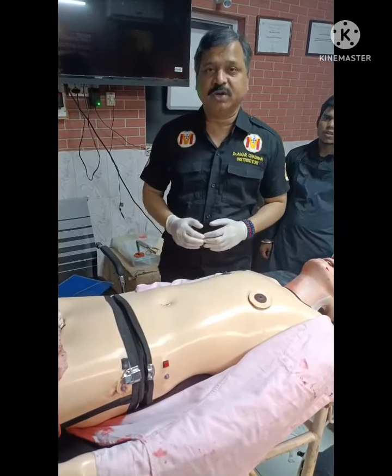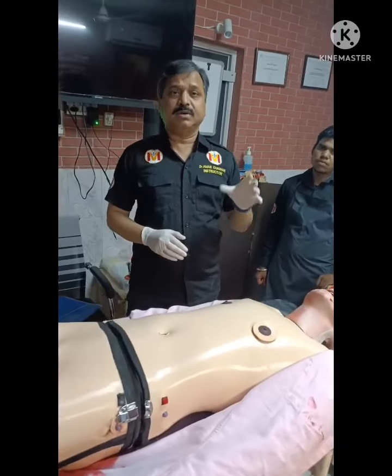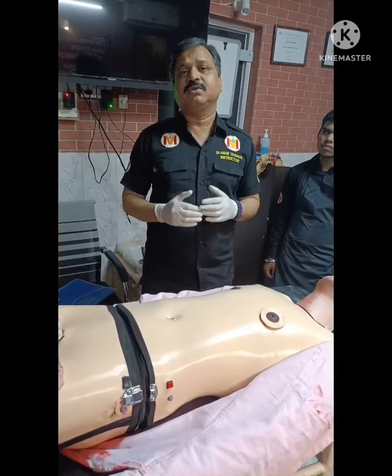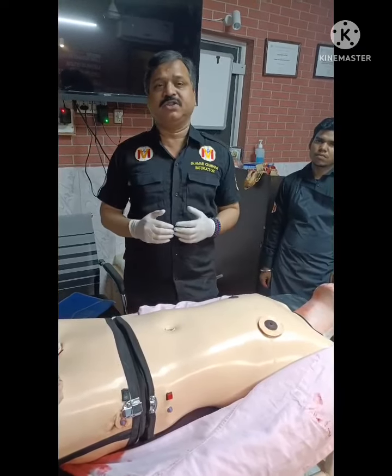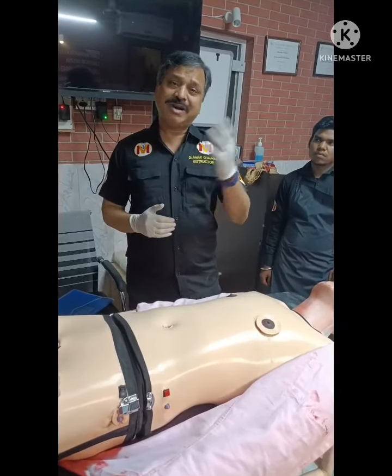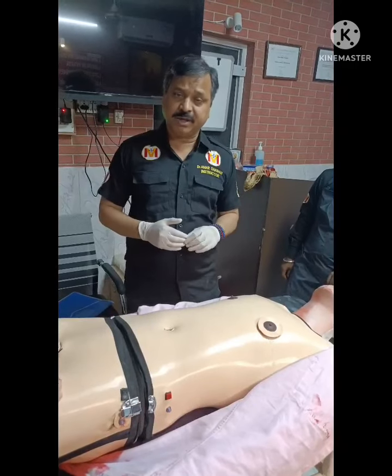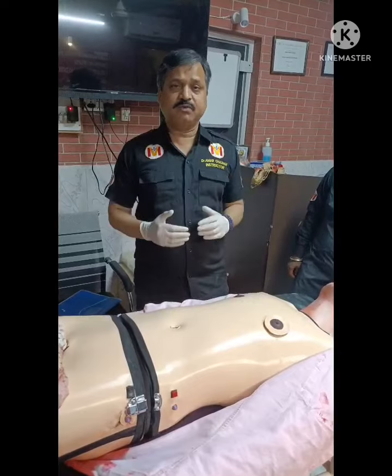Hello, I am Dr. Amar Chauhan from World Medicine Hub, and today I will describe various salient features of our Moulaged patient. When we are using a human volunteer, the security and safety of the volunteer is sometimes a concern. To overcome that, we have designed this high fidelity, low cost mannequin for low and middle income countries, and I will describe its features one by one.